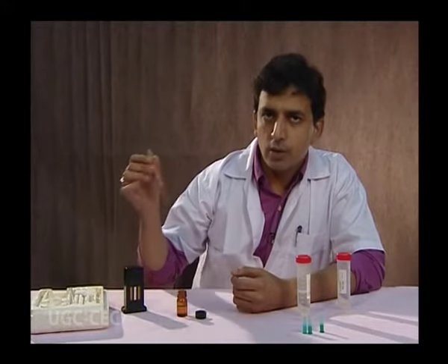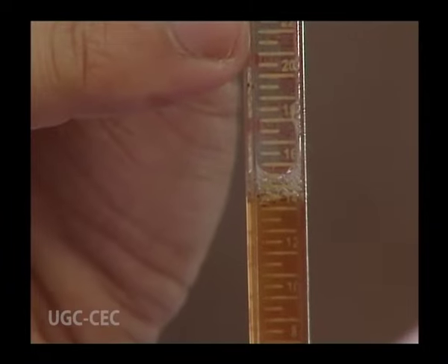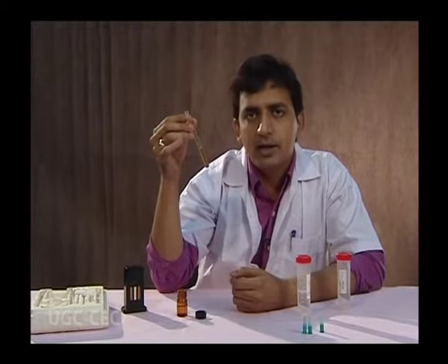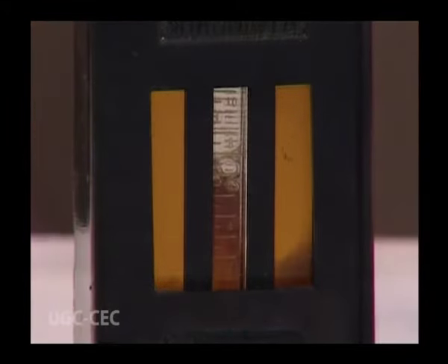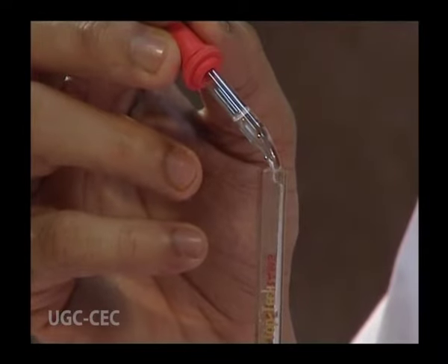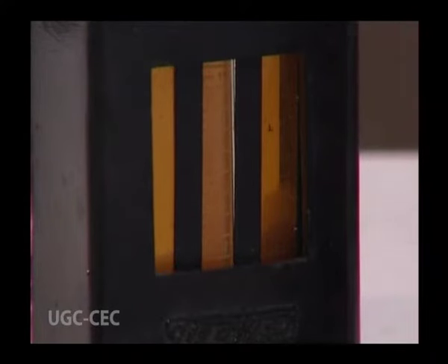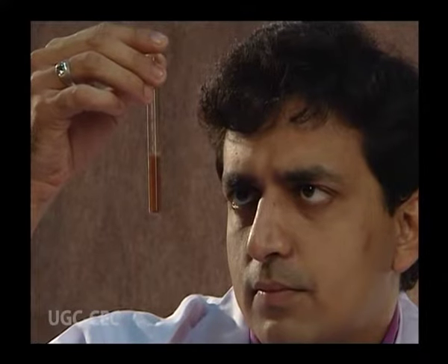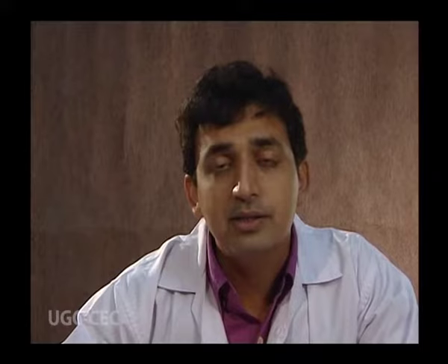Once the color matches perfectly, take out the dilution tube and observe the reading at the lower meniscus. Here, you can observe the reading at the 14.5 mark, which indicates that the hemoglobin level is 14.5 g/dL. In this experiment, first when we added blood to the HCl, it produced a dark brown acid hematin. Then, adding water drop by drop gradually reduced the color intensity until it matched the light brown standard color in the comparator box.